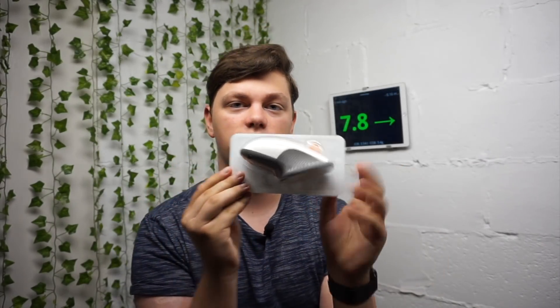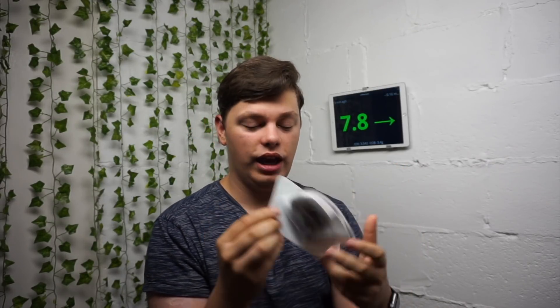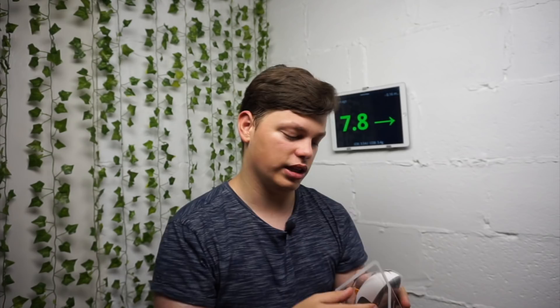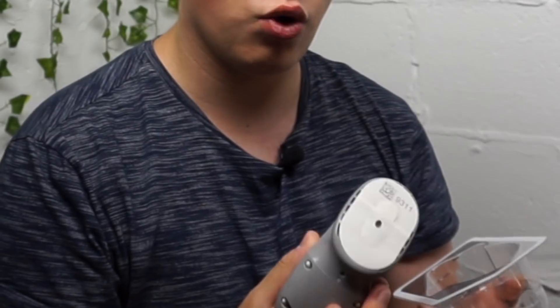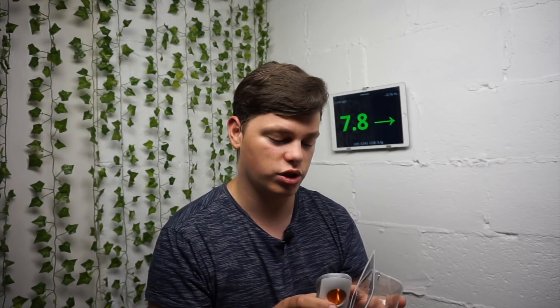This is what it looks like — this is the inserter, and it's in plastic. When I first opened this box and saw it I was like, oh my god, the amount of plastic in this is ridiculous. So I am working on a video on how to get rid of the metal inside and just have the plastic so you can at least recycle the plastic. Hopefully that video will be out soon.